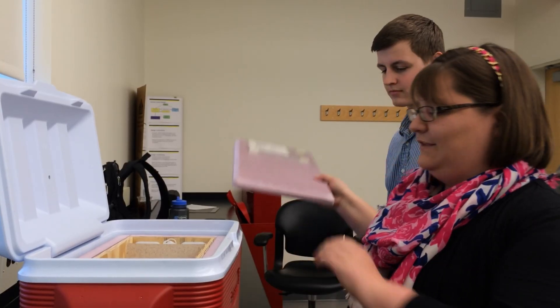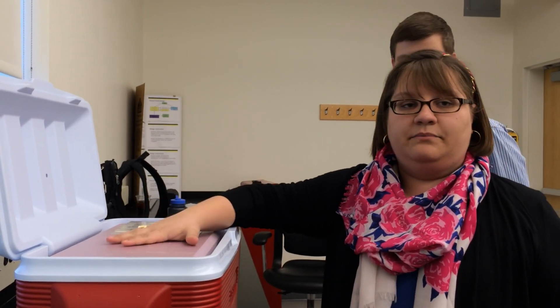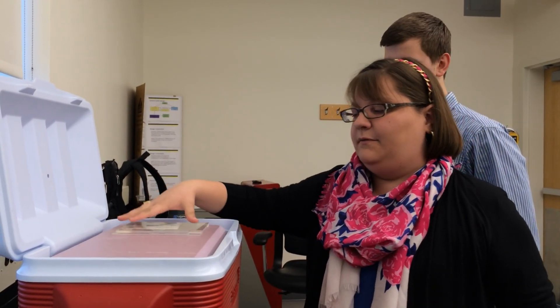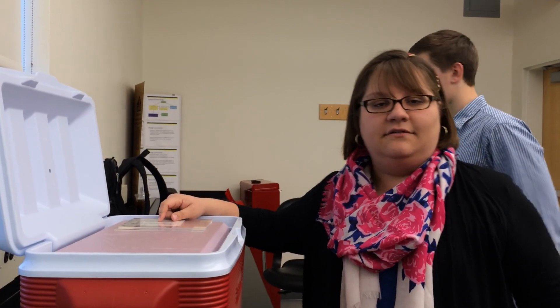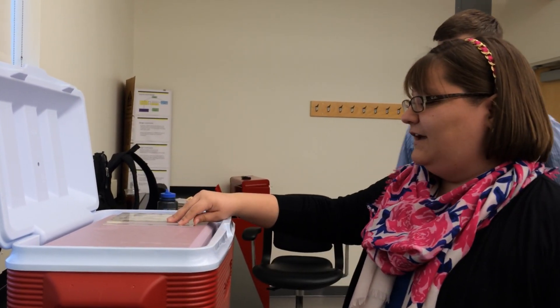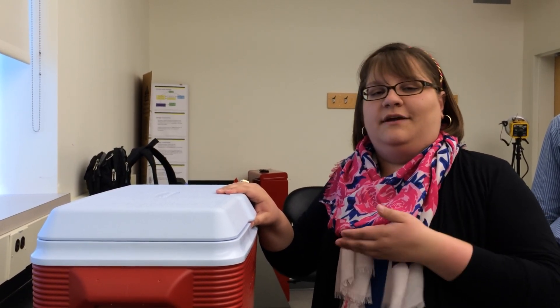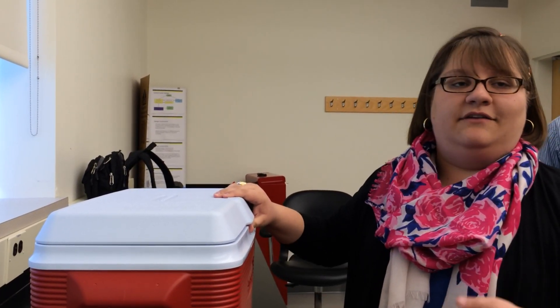This will be attached, and the lid that's attached covers the products. On top there will be a patient label. The coolers are patient-specific, and the label will be under this lid of the Rubbermaid cooler in order to prevent any discrepancies with HIPAA, because you need to keep patient privacy.